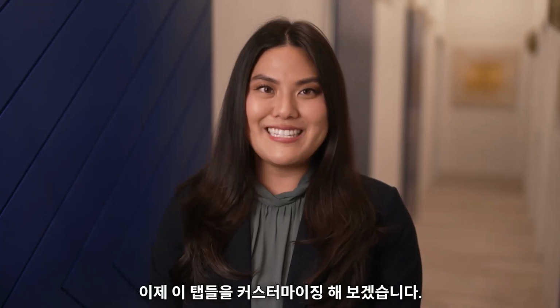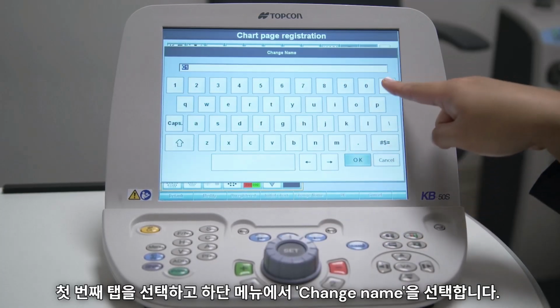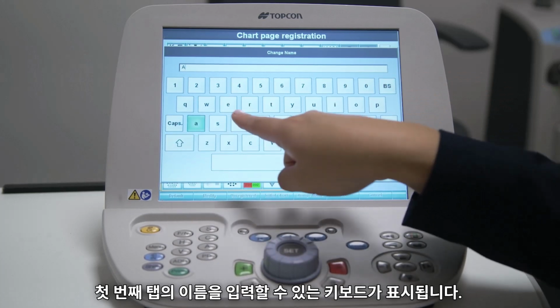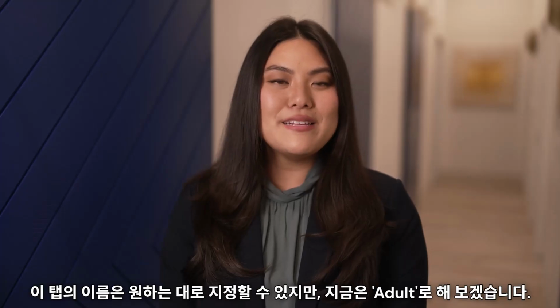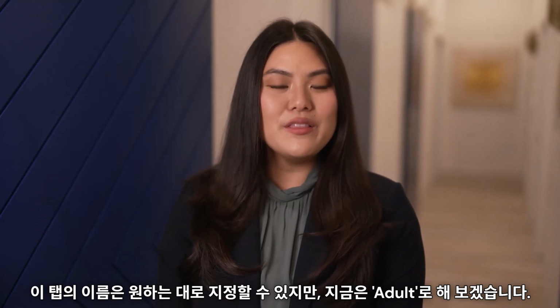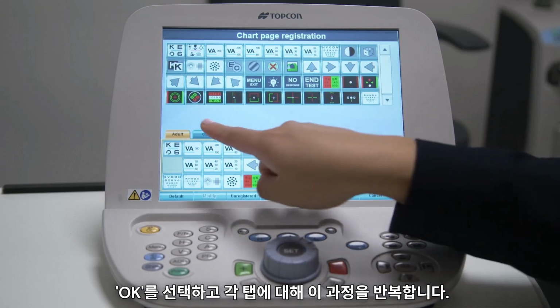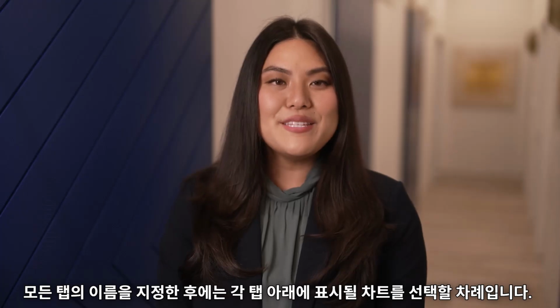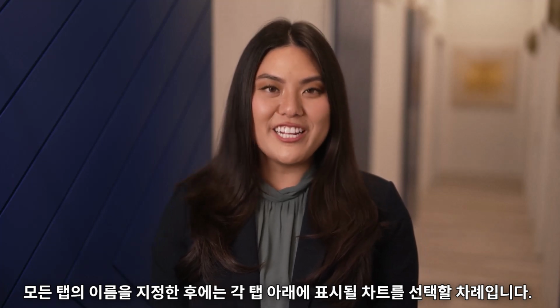Now let's customize these tabs. Select the first tab and select Change Name from the lower menu. This will display a keyboard that allows you to type in a name for the first tab. You can name this tab whatever you want, but for now, let's name it Adult. Select OK and repeat this process for each tab. Once you have named all the tabs, it's time to choose what charts will appear under each tab.